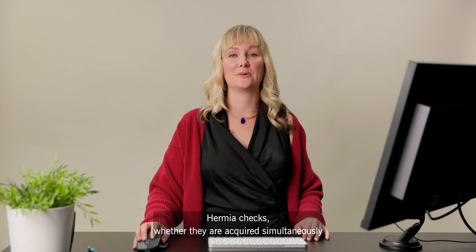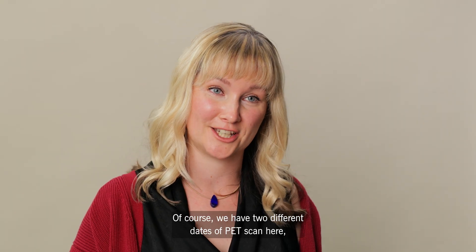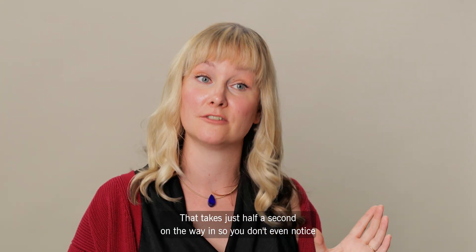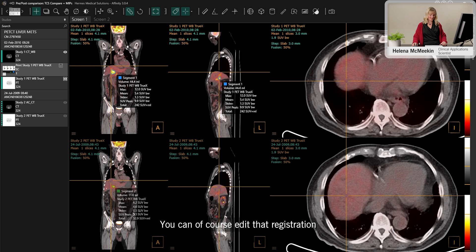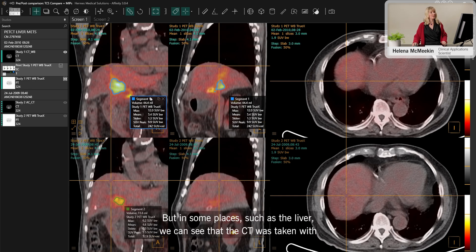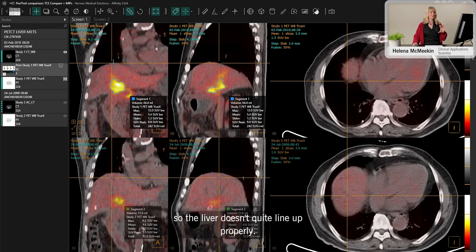When studies are loaded, Hermia checks whether they were acquired simultaneously or whether it needs to do a registration to align them. Since we have two different dates of PET scan, it automatically performs that registration — it takes just half a second, so the studies are shown to you already aligned. You can edit the registration if needed; it uses the whole body to line them up, but in some places like the liver, breathing motion differences can mean it doesn't quite line up.